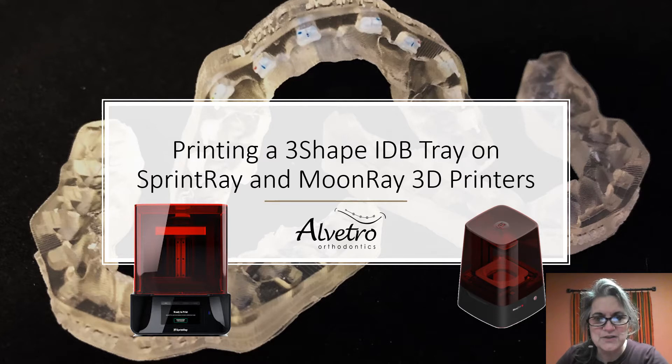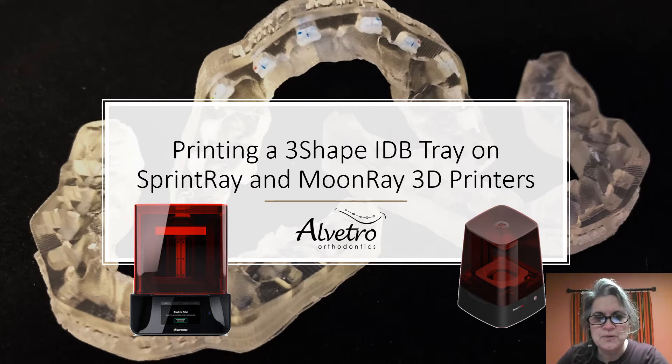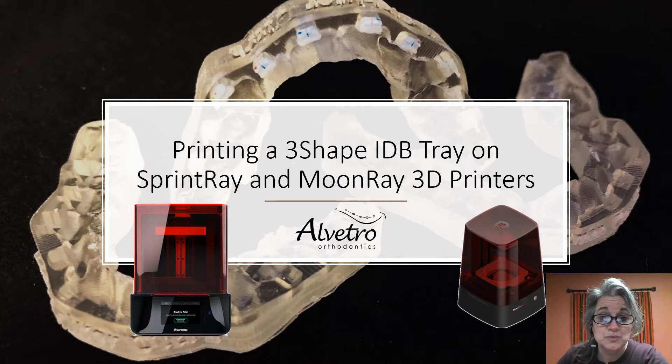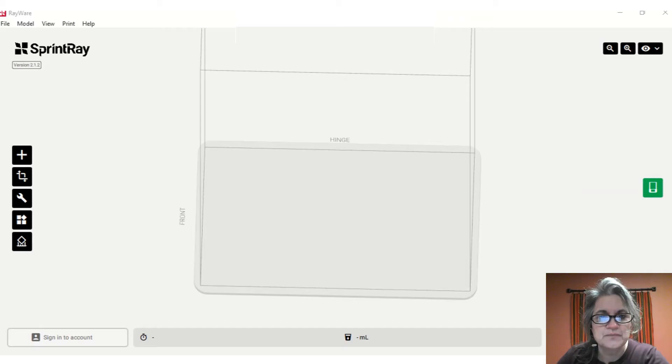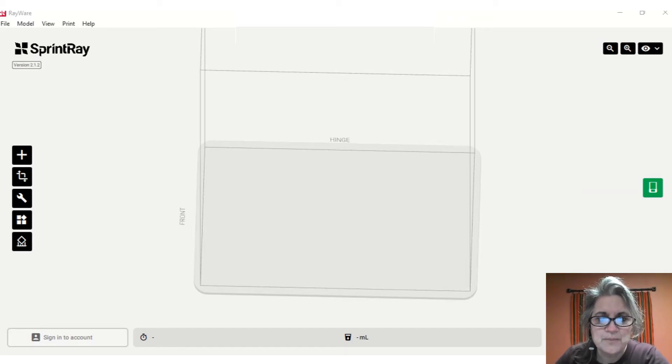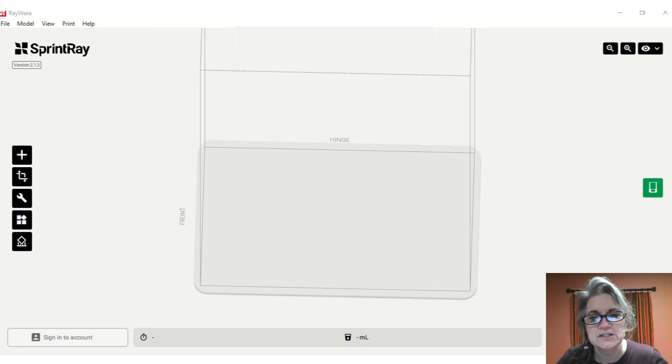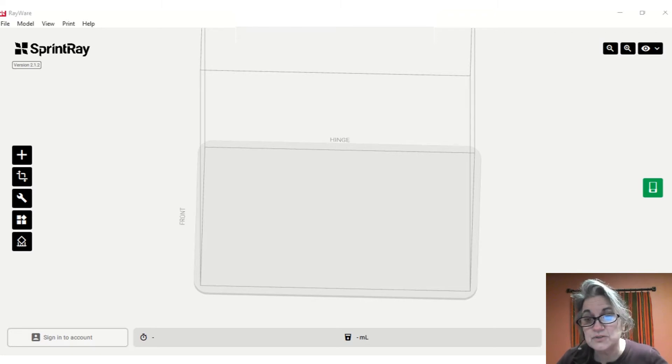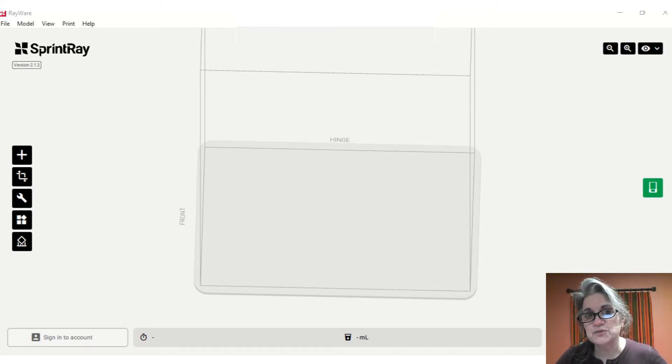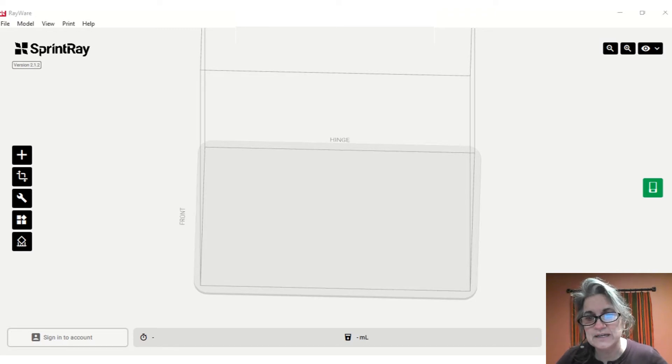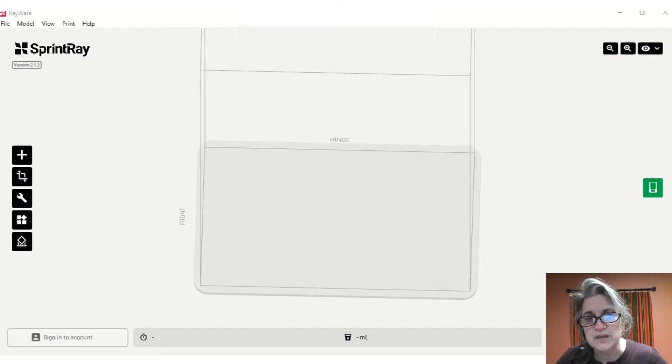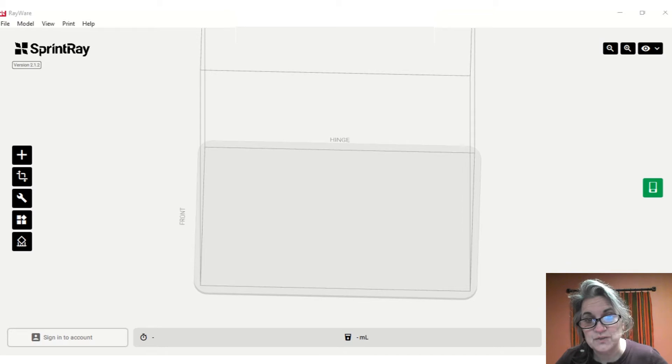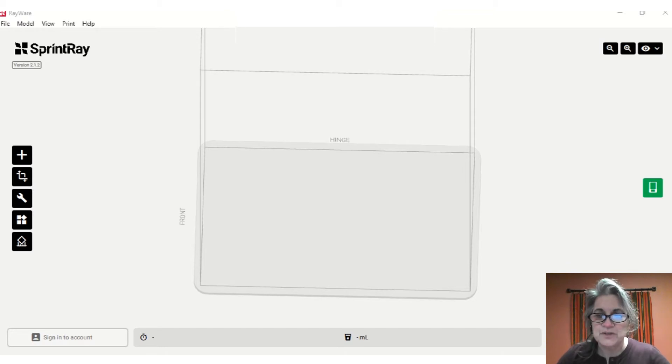You've designed your tray, now it's time to print. I'm going to review how we like to print using either our SprintRay or MoonRay printers. Often we'll use the MoonRay because it has a smaller tank and we're using less resin. My concern with the SprintRay Pro is I'm putting a lot of resin in that will be heated over multiple times, since each tray uses such a little bit of material. We've dedicated the MoonRay just for that printing application.